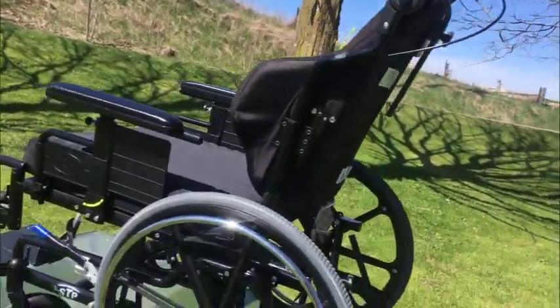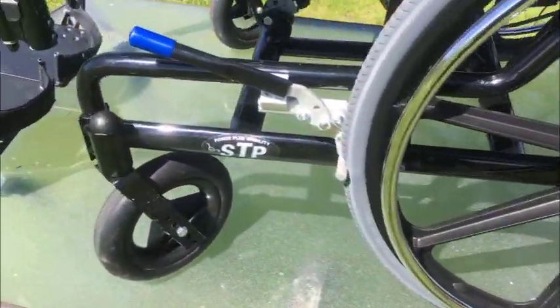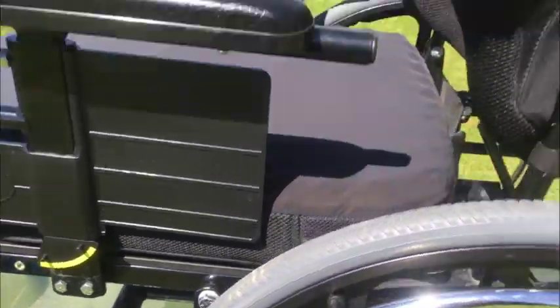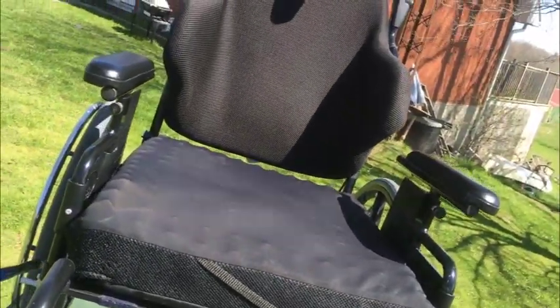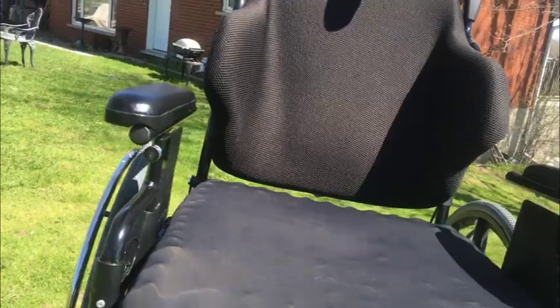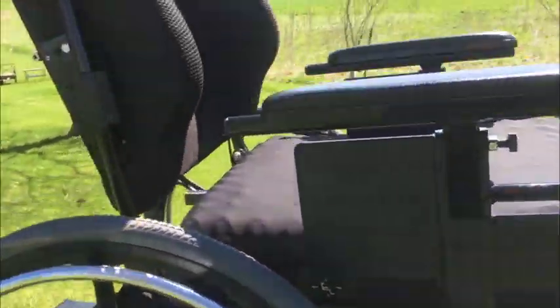My fantastic Power Plus Mobility STP tilt chair — let's go through it. It came to the estate and we don't need it. It is in like-new condition and surgically clean. We're going to take a minute to take a little tour of this particular chair, and then you'll want to buy it.